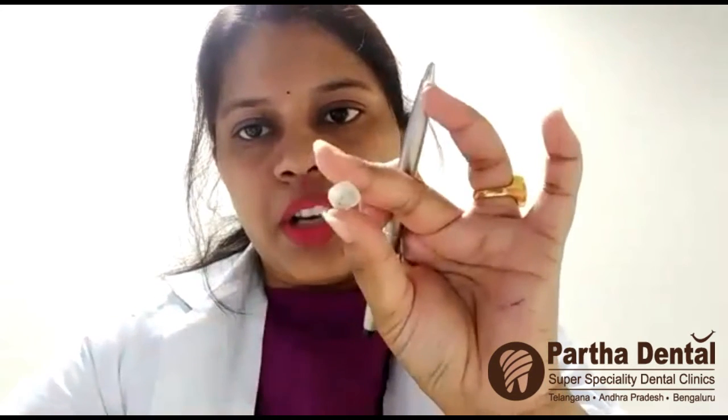To address that problem, there are zirconia crowns, which were introduced at Partha Dental. Zirconia is the latest technology, and nowadays everybody is opting for zirconia crowns. Zirconia is something where inside and outside there is a single material — there is no added metal. If you can just see, inside there is a single color and outside also there is a single color only. This type of zirconia generally does not break, and the efficiency and strength is very high in zirconia.